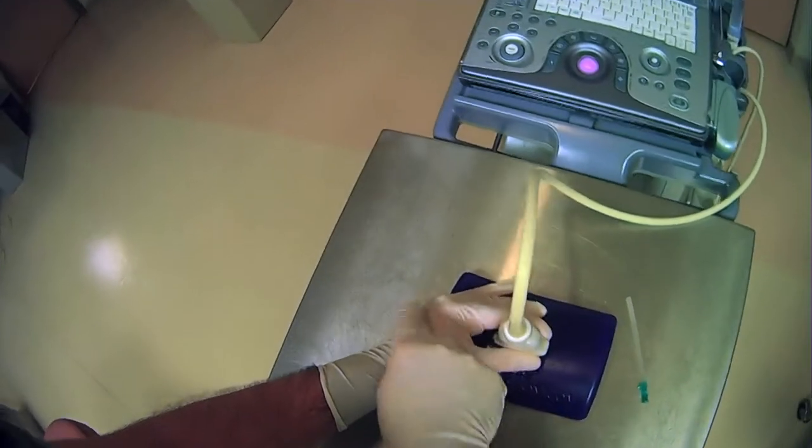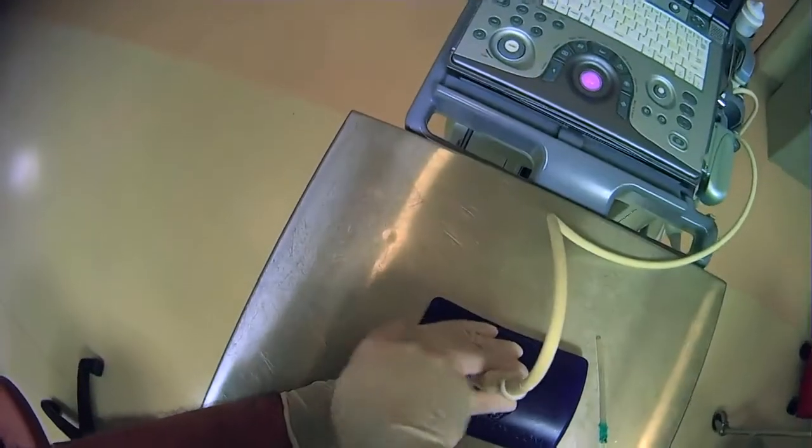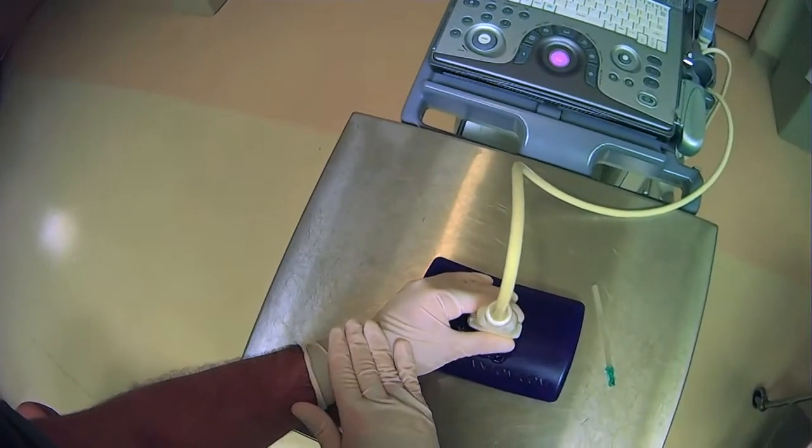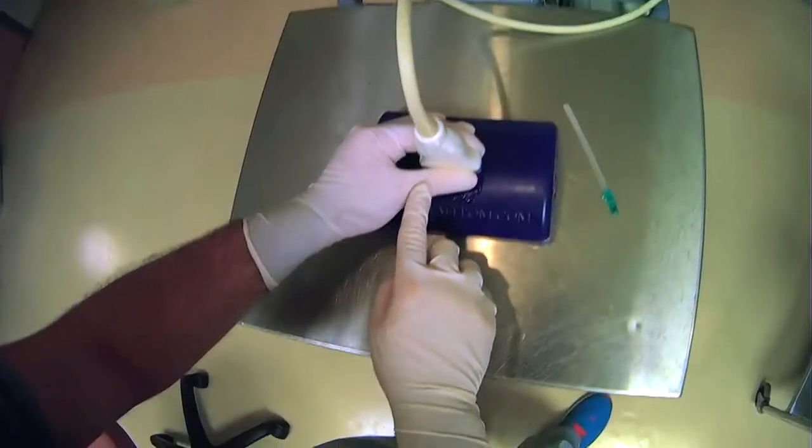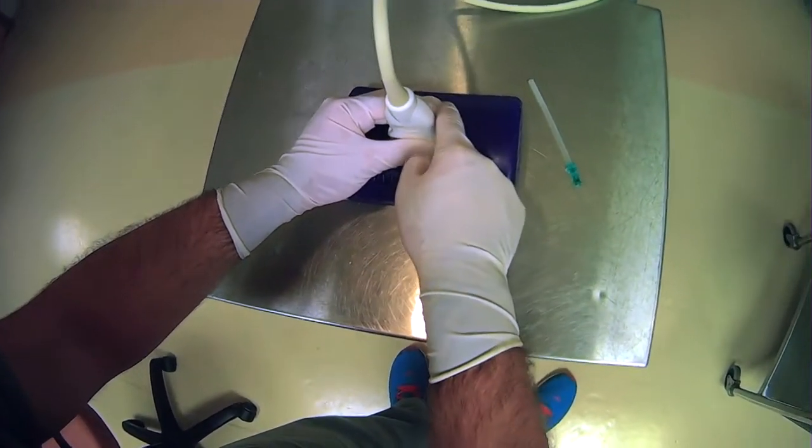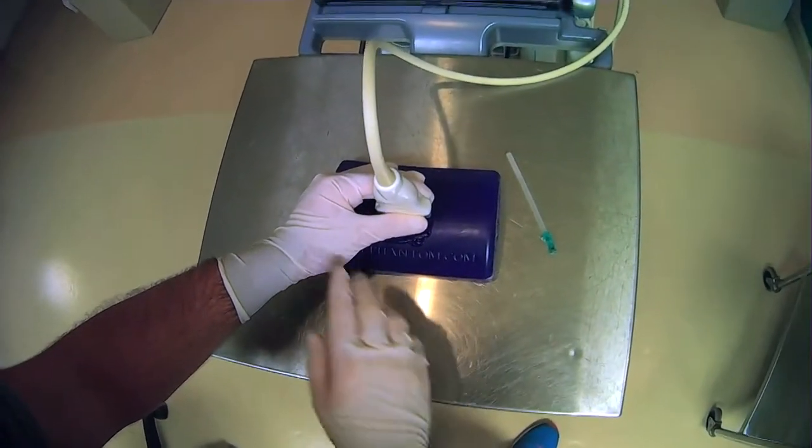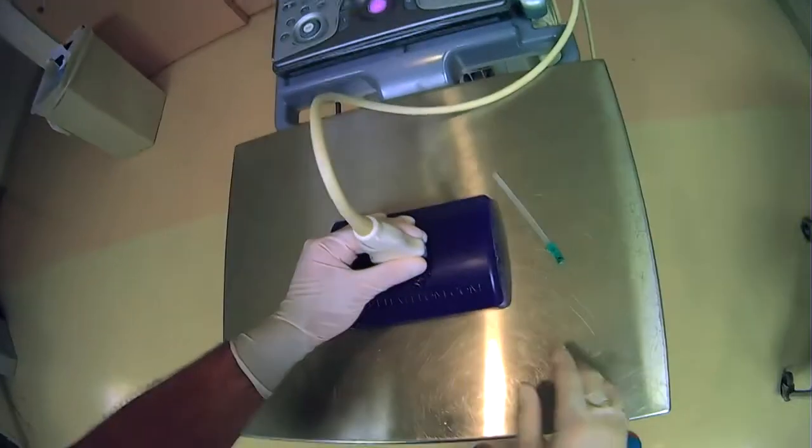you can actually rest your hand on your work surface. So now this hand is very stable. And then you have secured the probe on both sides, as you can see here with the thumb and here with the fingers. So everything is very secure and stable here.